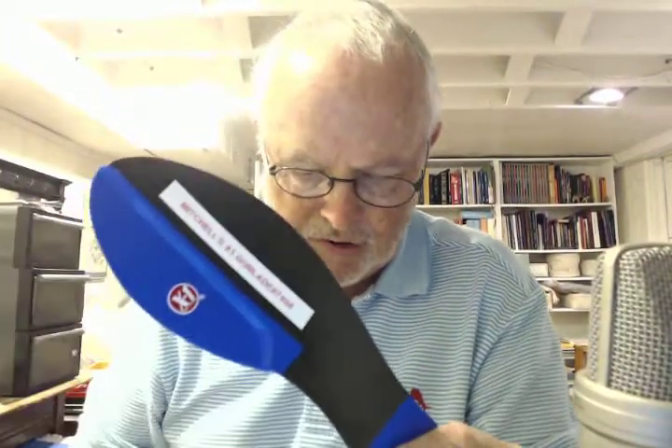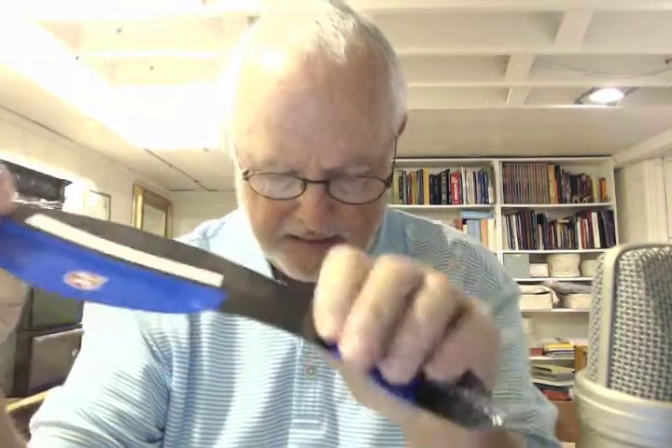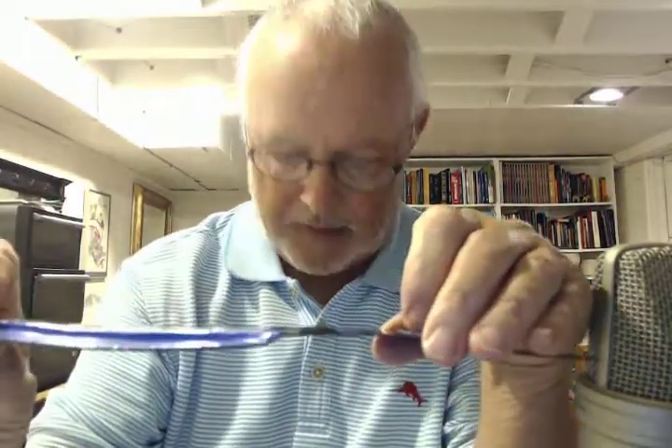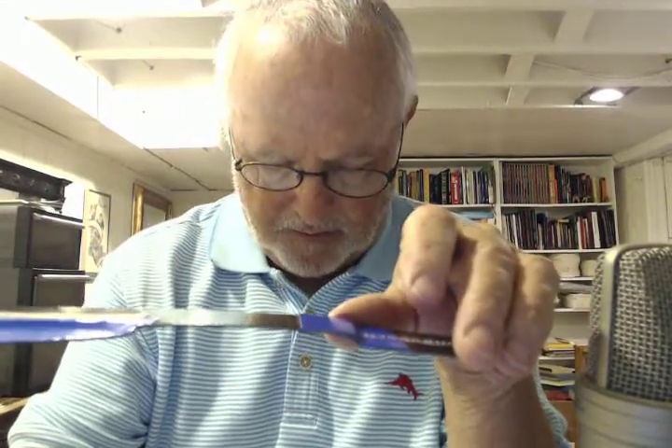He's got one of my Fusion Blades. He's got Hallux Rigidus, but he wanted something to be able to fit inside a nice dress shoe, so we made him a Feather Model. This Feather Model weighs 0.950 ounces and is three hundredths of an inch thick.